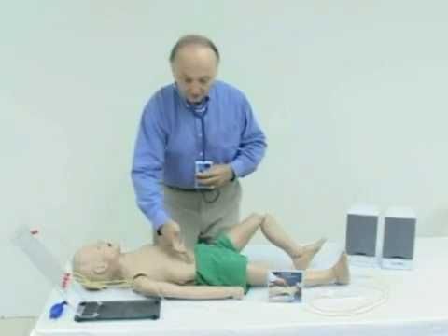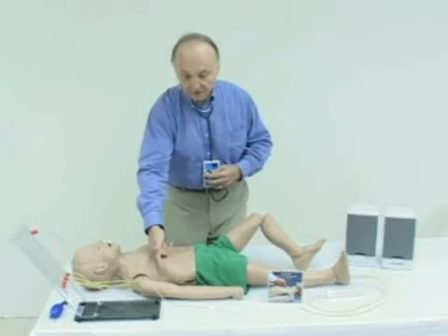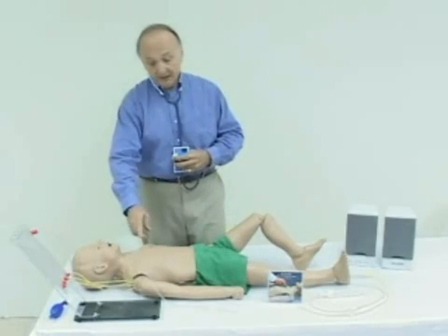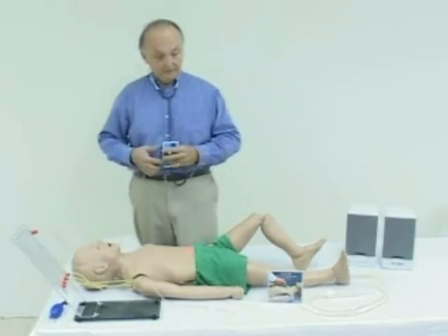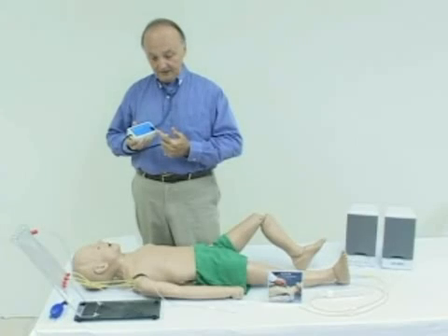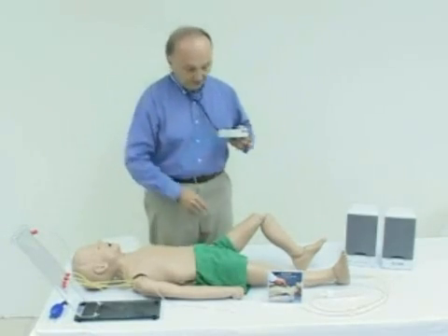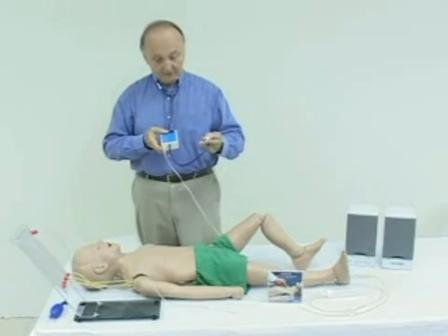No problem. The overlay of the skin, front and back, is attached conveniently to the five-year-old with Velcro strips. You have the same points as on the adult: the trachea, base left and right, upper lungs, LLSB, apex, base left and right lower, and the same on the backside. The stethoscope looks the same but is fitted with pediatric heart and lung sounds. The functionality is the same — 9-volt power supply, menu of sounds on the back — and of course we have the attachments so the classroom can hear exactly what your student is hearing through their stethoscope.